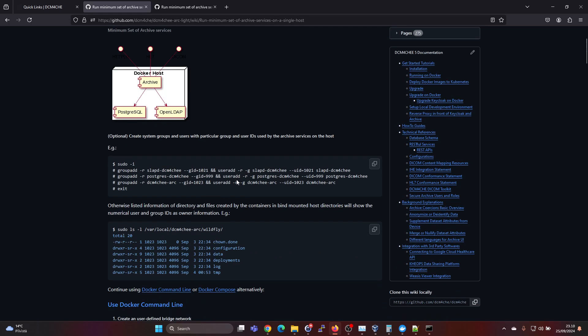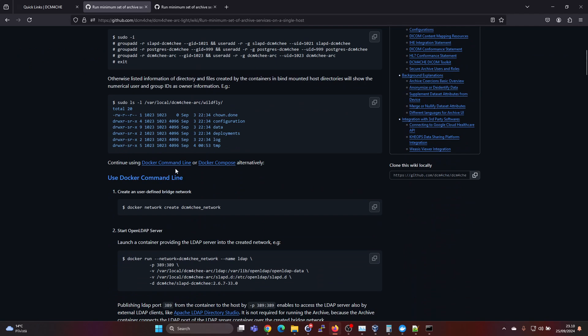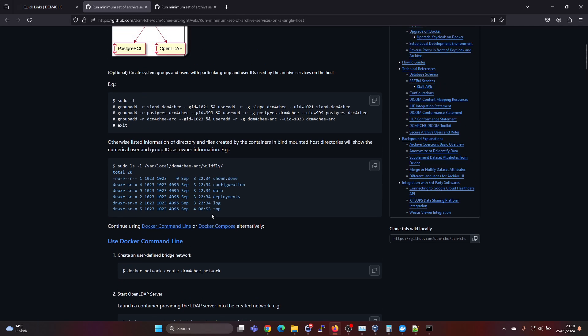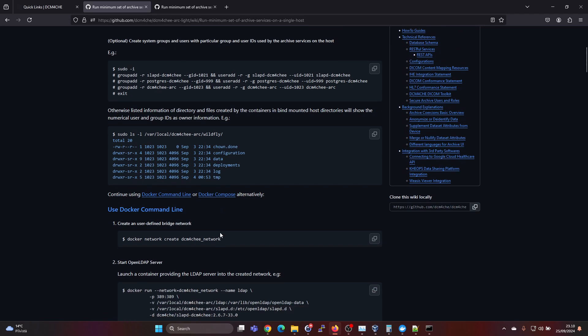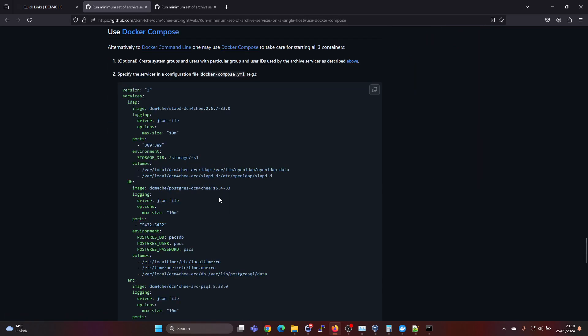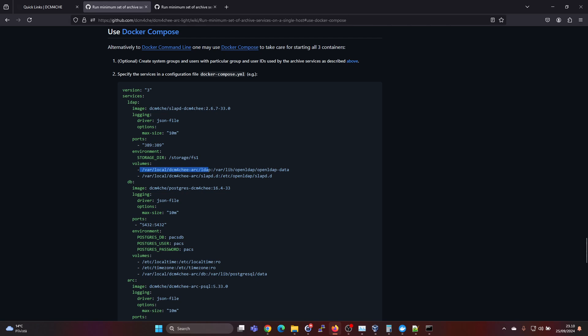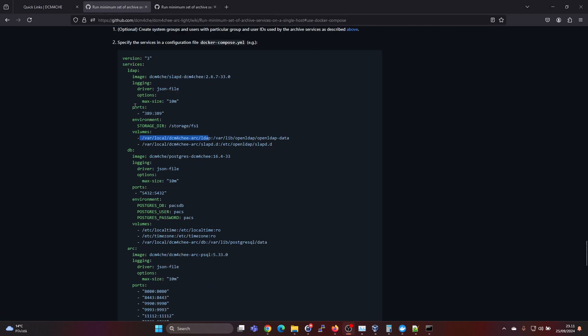So then if you scroll down a bit, you will find continue using Docker command line or Docker compose and Docker compose is quite a bit easier, faster. So we will use that approach here and you can go ahead and just create the Docker compose YAML file and copy this YAML content from here. But this is meant for a Linux environment. So they don't give you directly an equivalent for the Windows environment. So we do need to modify a few paths here and also the time zone stuff is different. But I will give you in the video description the modified Docker compose.